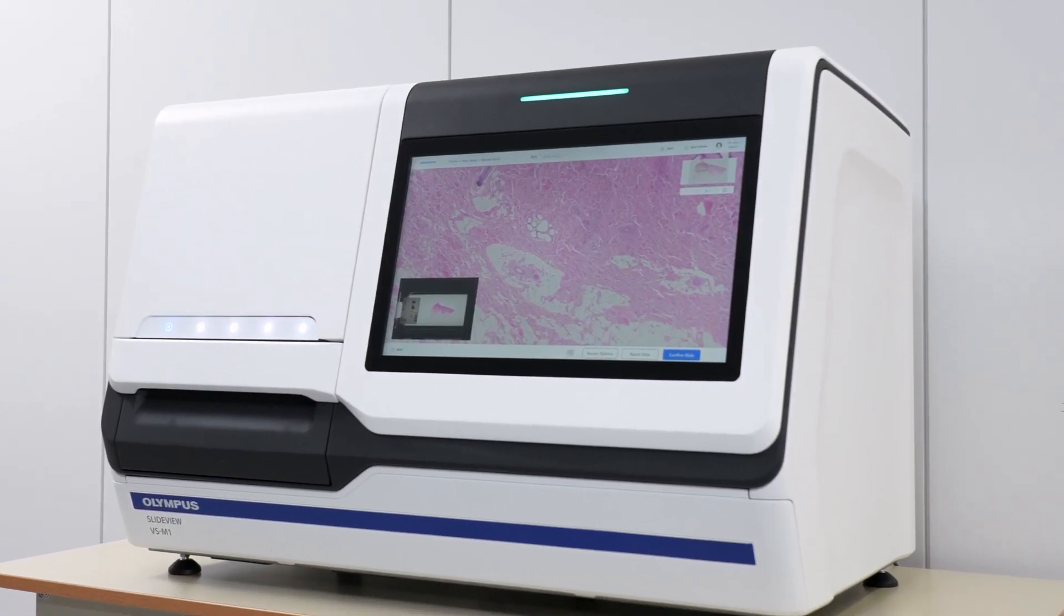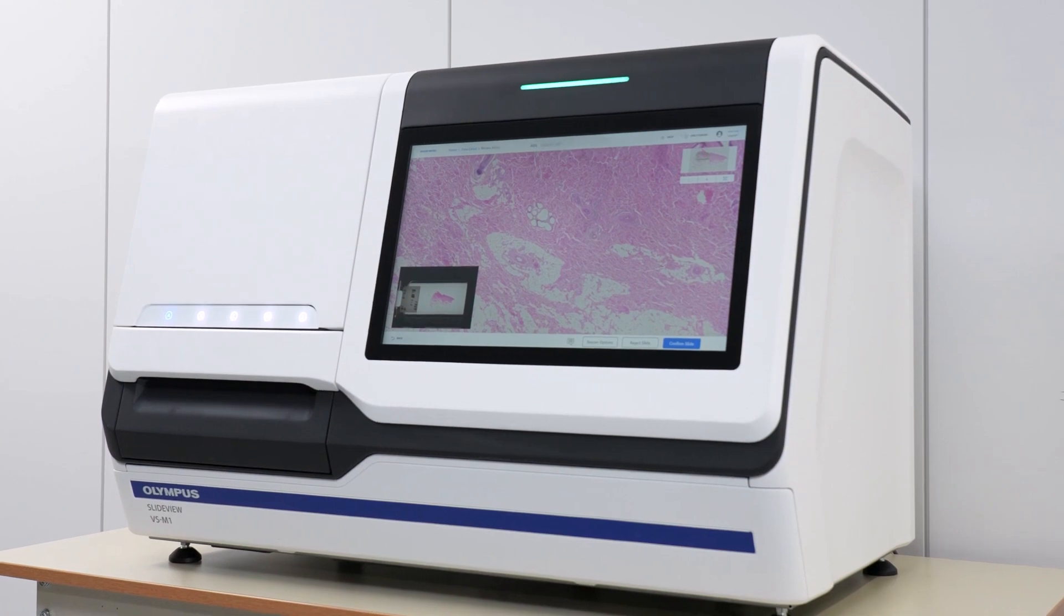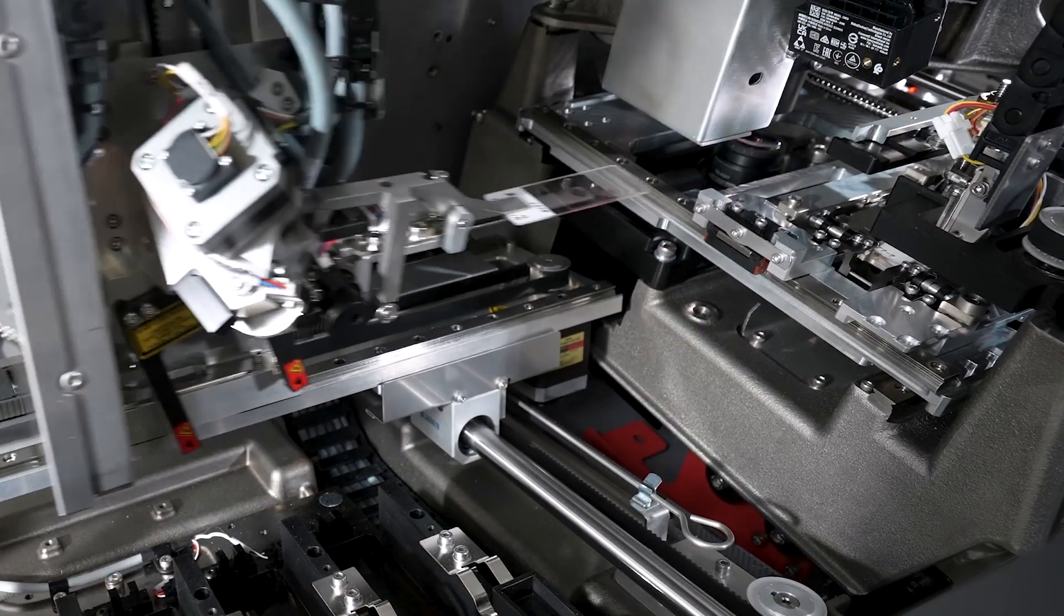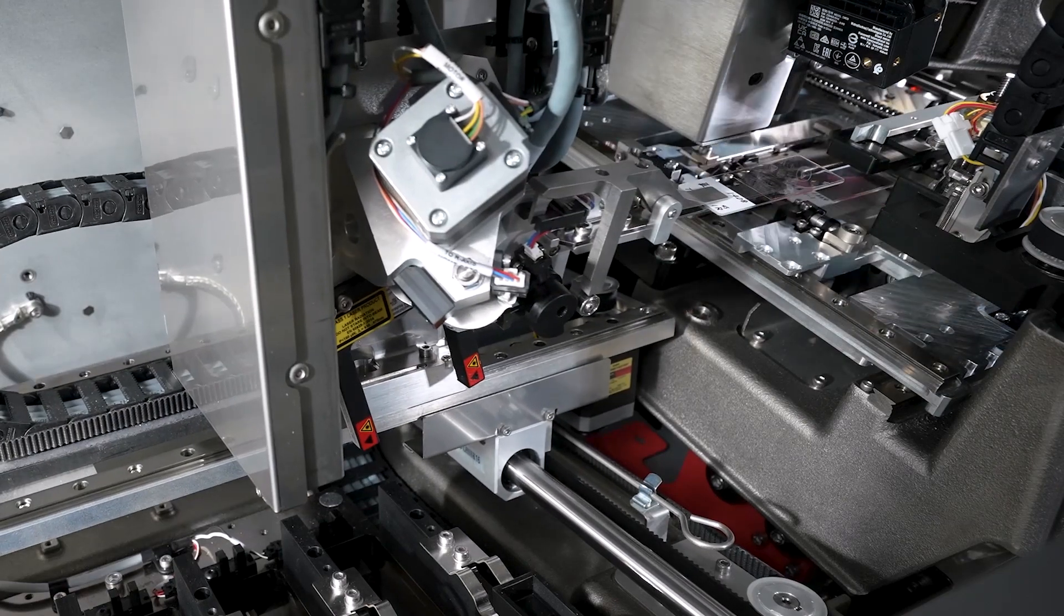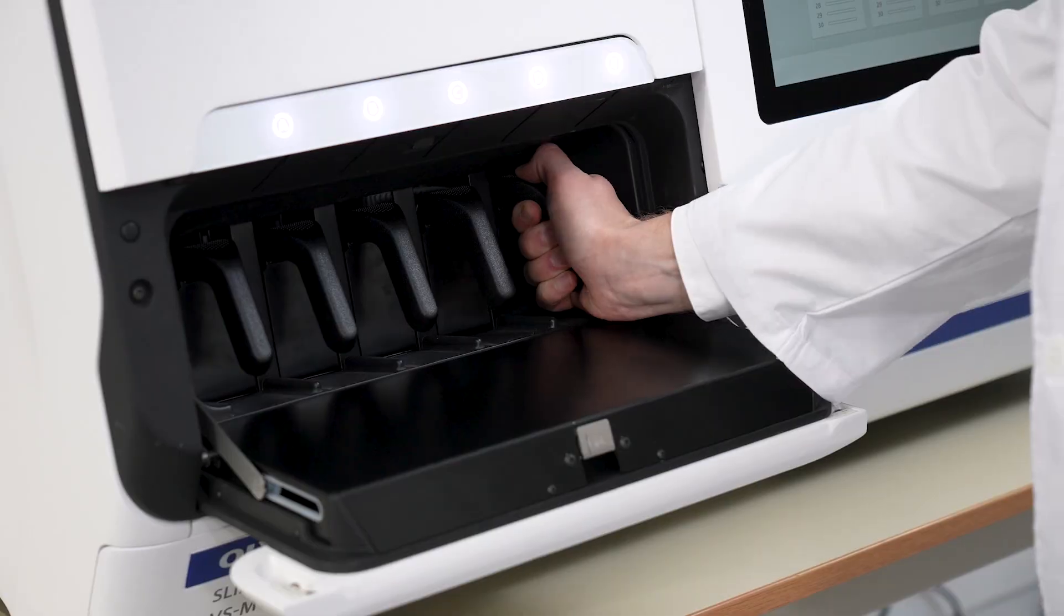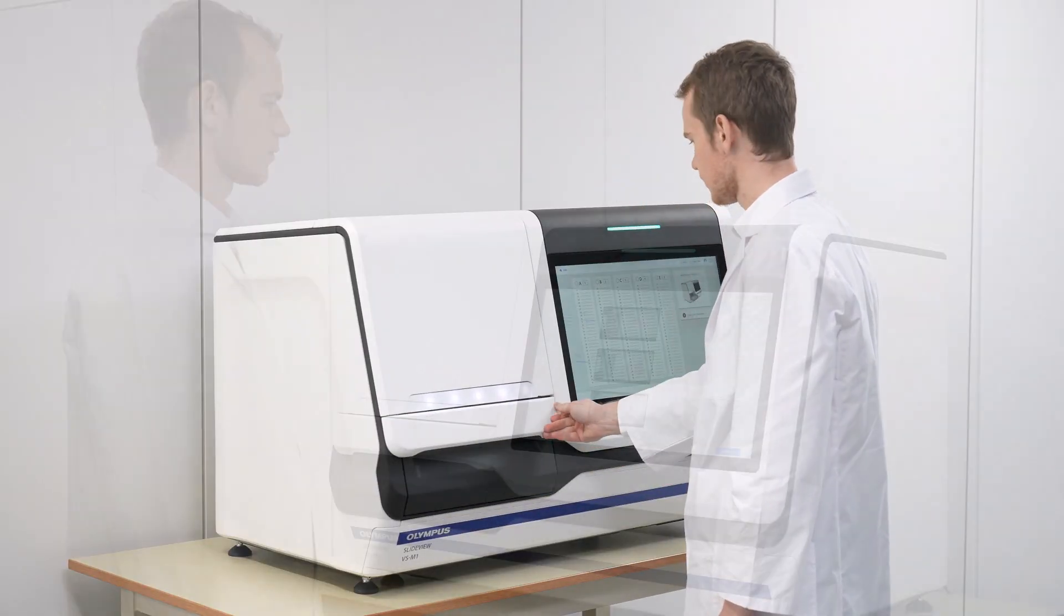The SlideView VS M1R Whole Slide Imaging System combines leading-edge technologies, including a dedicated X-Line objective and TrueColor LED illumination, to create a fast slide scanner that delivers microscope-quality images on screen.